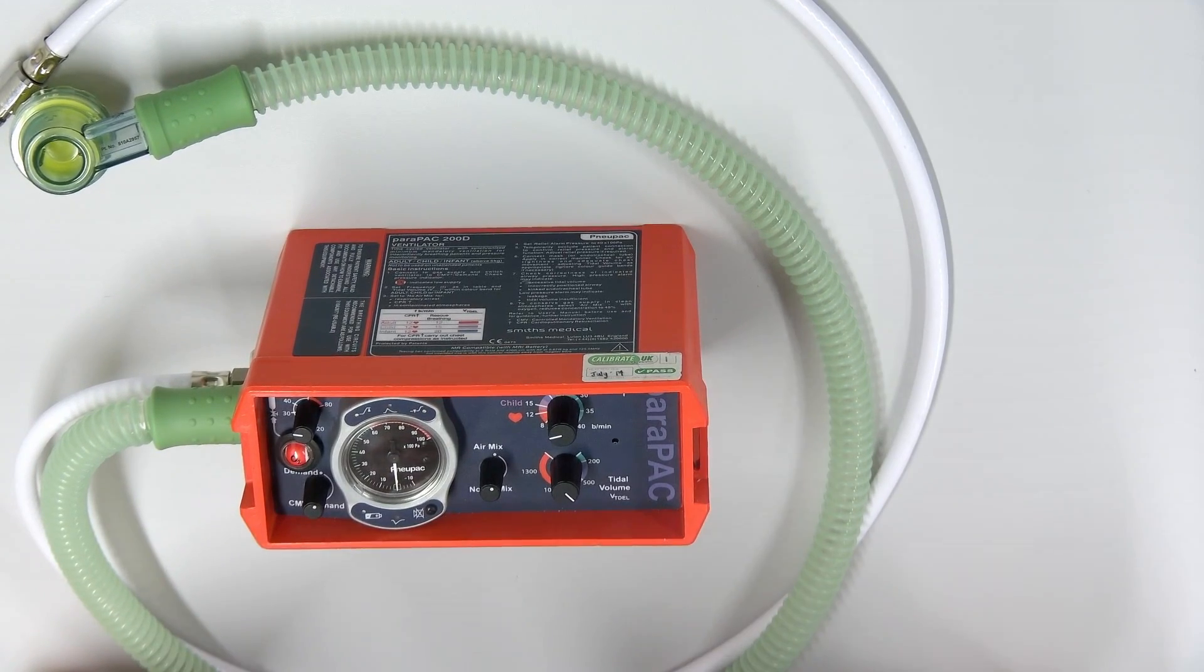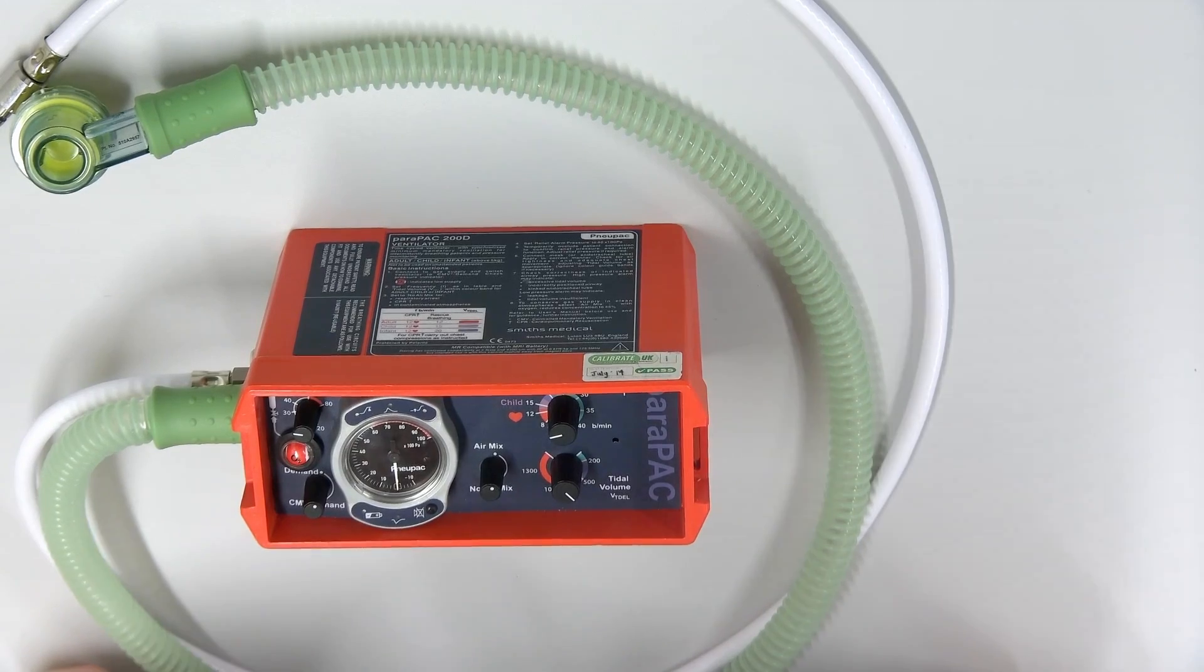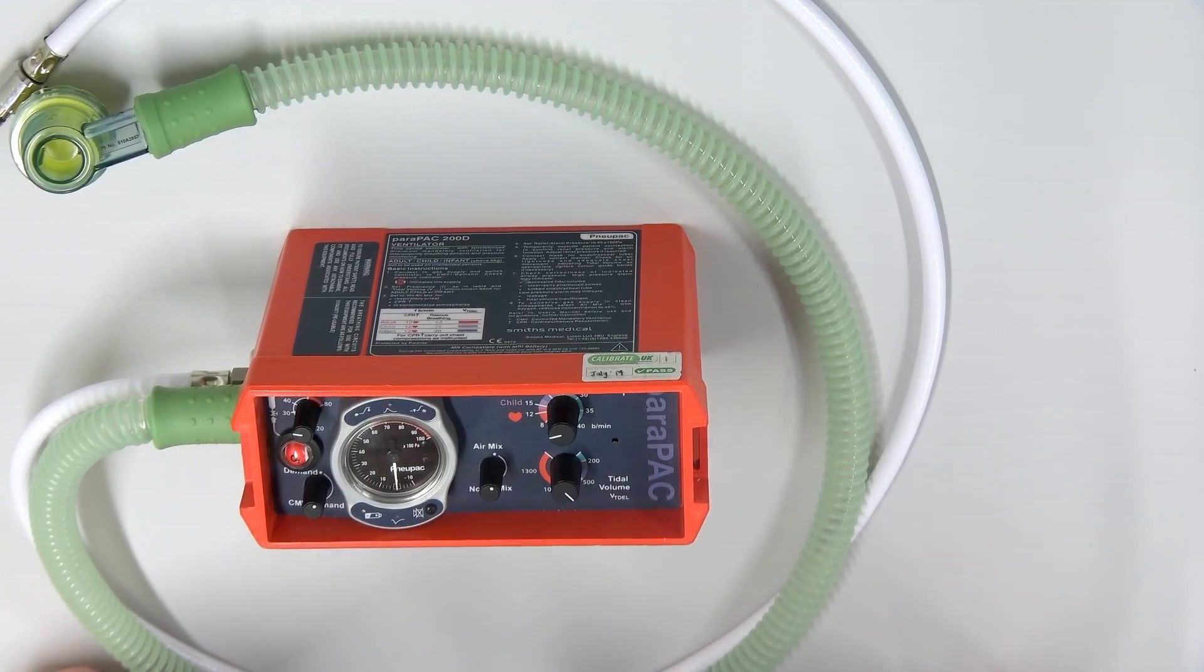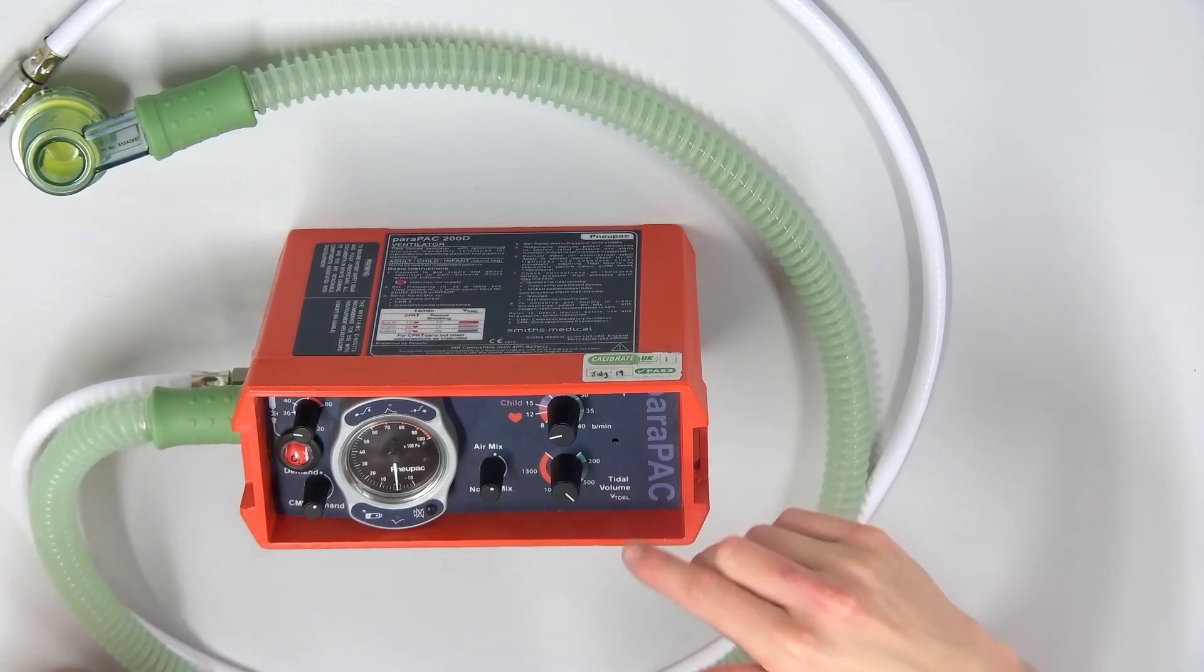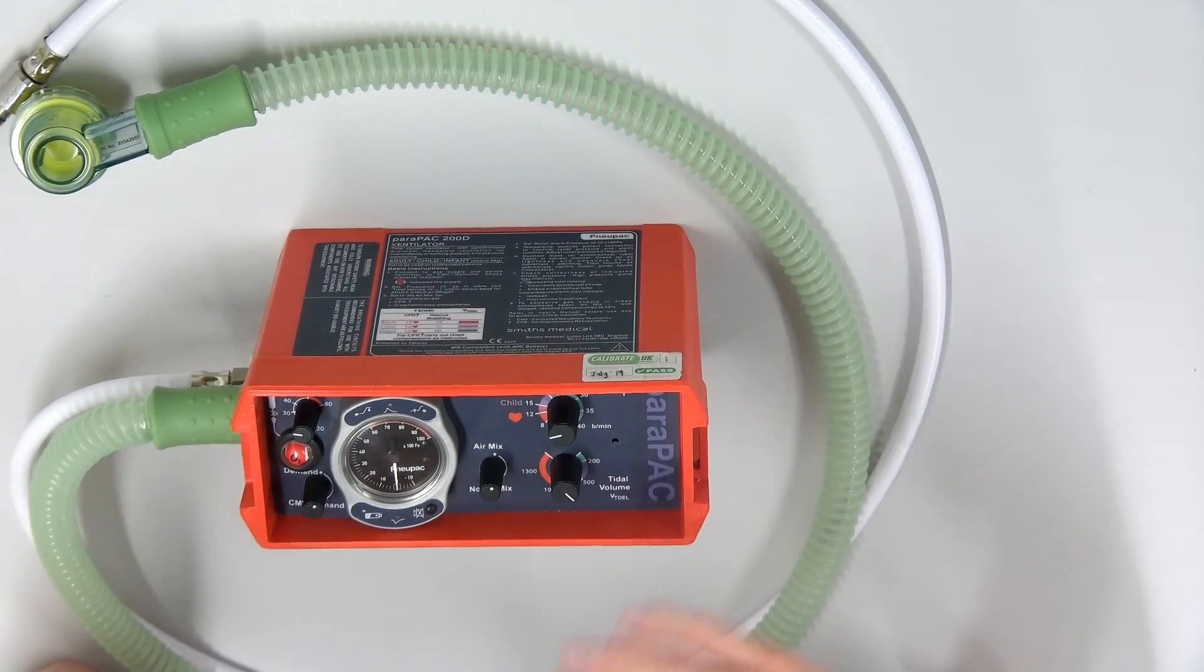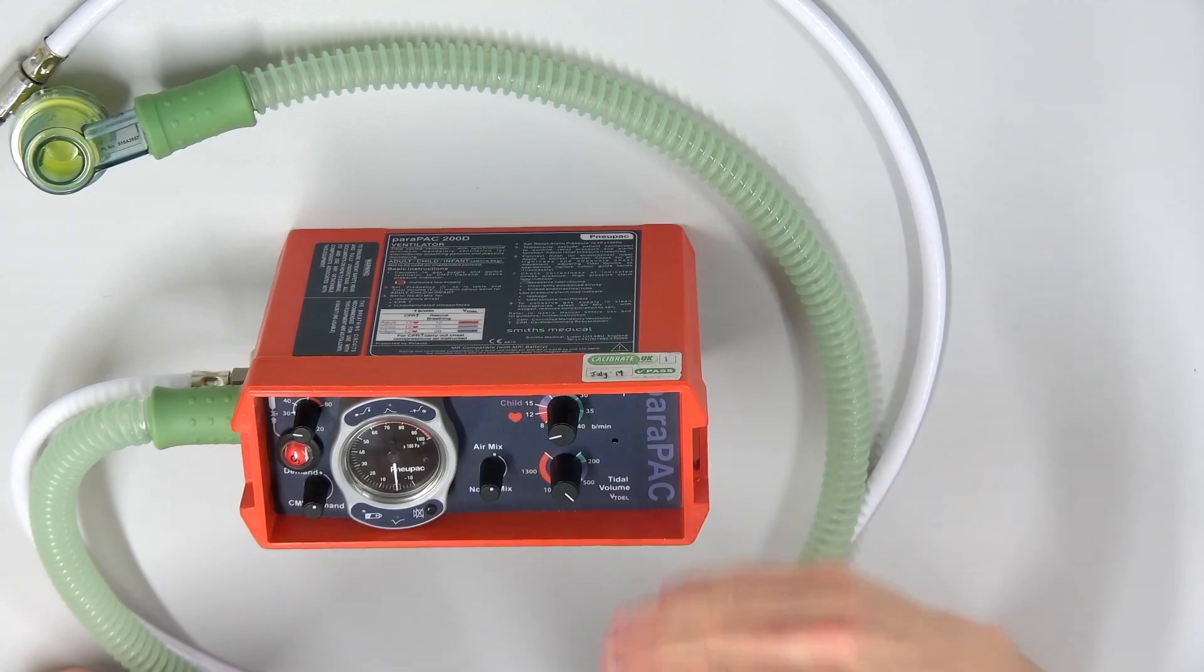This is also a volume control ventilator, not a pressure control ventilator, which means that we can control the volume. We control the tidal volume, and it tells us how much pressure. You get pressure control ventilators that then tell us the volume. This is the volume type.